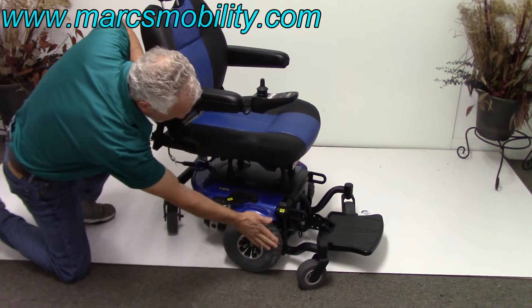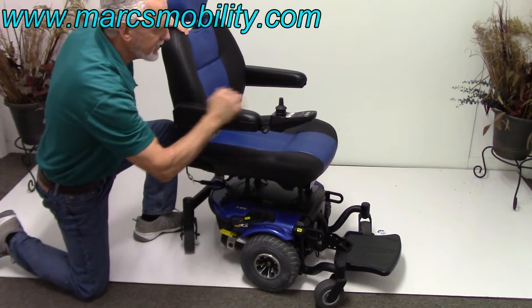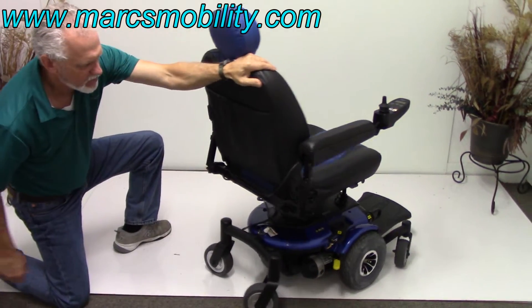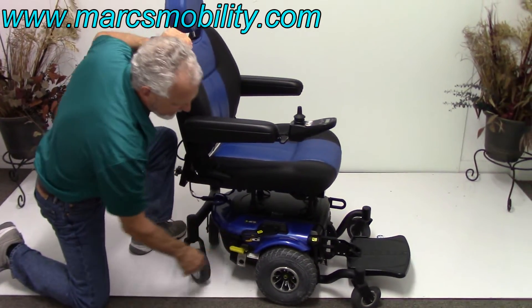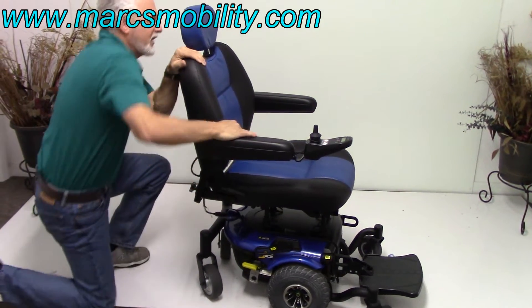You've got a motor for each wheel. If I needed to push this chair right now, I couldn't do it. All you have to do is pull out this yellow lever and you're in neutral. Do both sides and then you can push the chair — this is a very easy chair to push. Push the lever back in and you can see you're back in gear; turn your power back on.